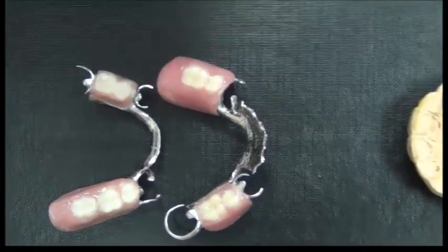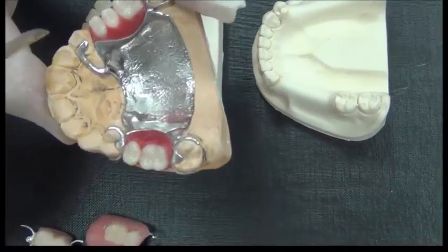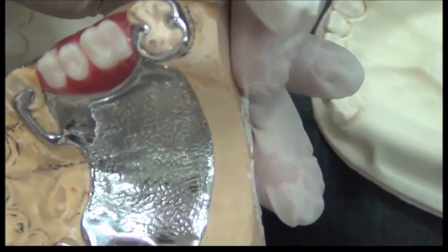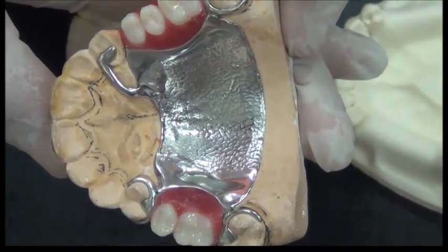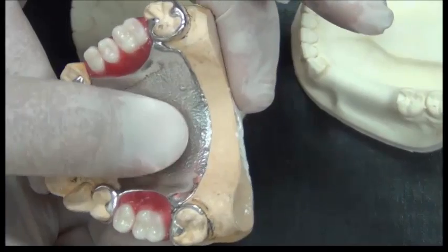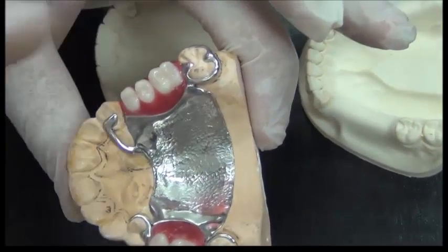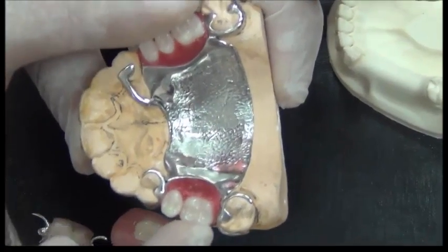If I take one of these cases, let me take this because with the cast on, you would find that I need to add multiple components around the teeth to utilize features already present in the oral structure. For any denture to function, it should have three principles. These are support, it must be well supported, it must be retentive, resisting removal during function, and it also should be stable.